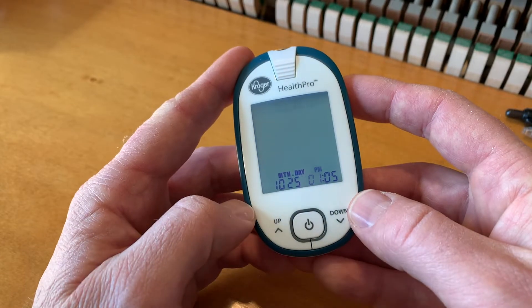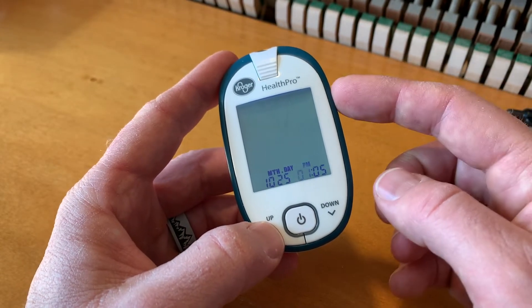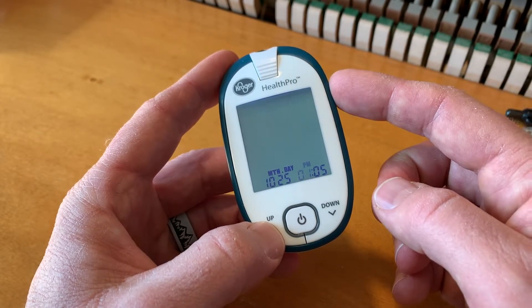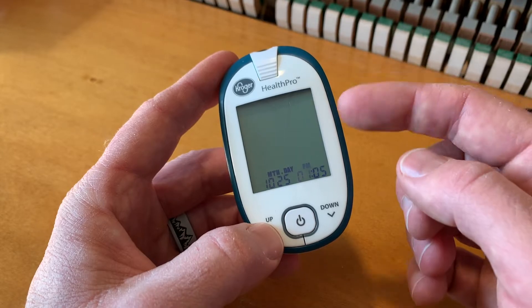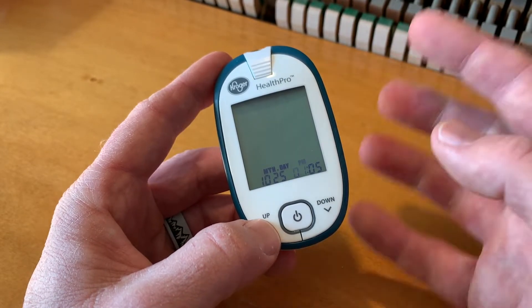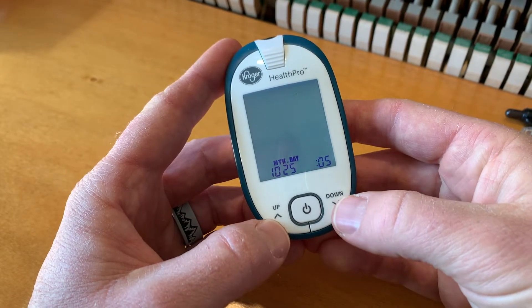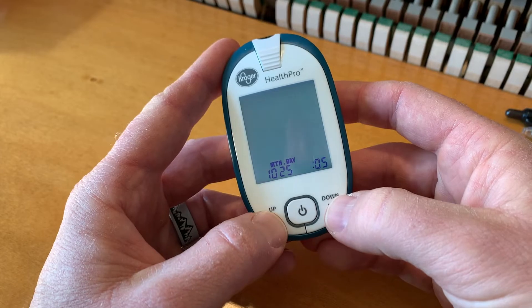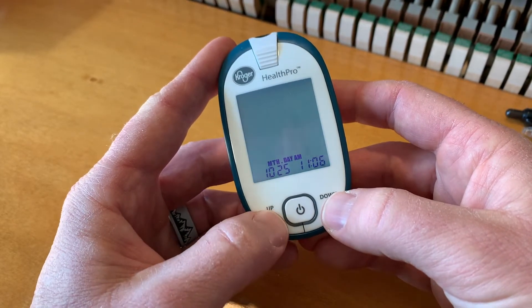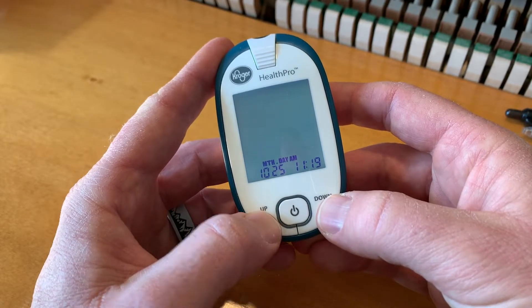So I'm going to hit the power button again — it's going to go over to the time. This is super important because you do want to use the tracking that this comes with. There are 365 days of tracking internally on this, but you have to have the right times set up or it won't match your data when you take the test. It's currently 11:18, so let's go 11. I'm going to hit the power button again and go over to the minutes, and I'm just going to round it up here to 19.